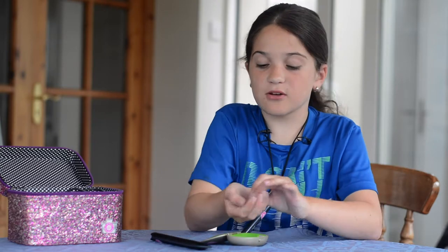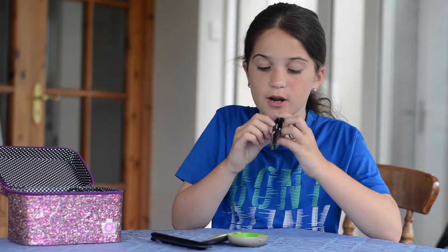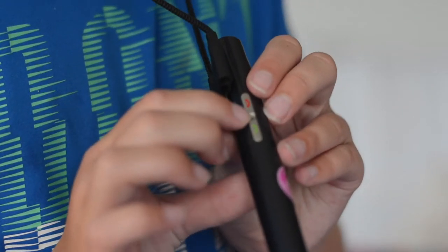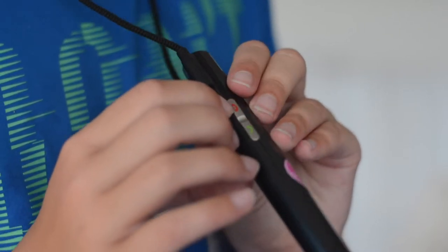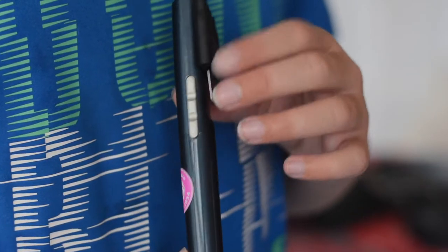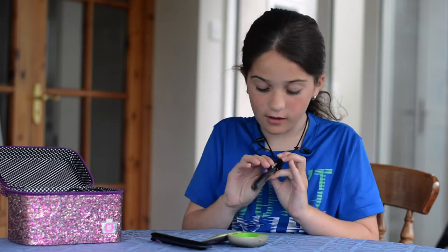Here are some of the batteries — these are two dead batteries. There's a little power button and three buttons total. This is the Roger pen sound. To turn it up, there's a green telephone button — you press that to turn it up. And then there's a red telephone with a minus sign below it, which means to turn the volume down. On the other side, there's power, one to connect to other devices so I can listen to music, and mute so you can mute it.